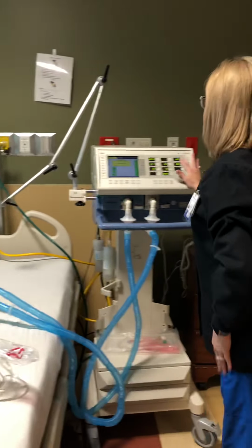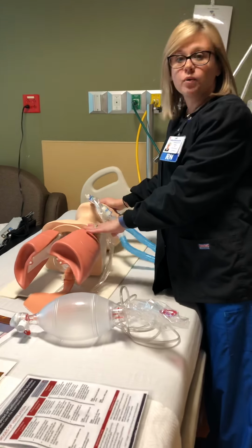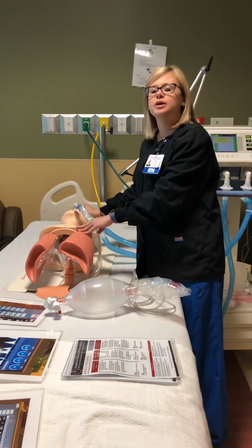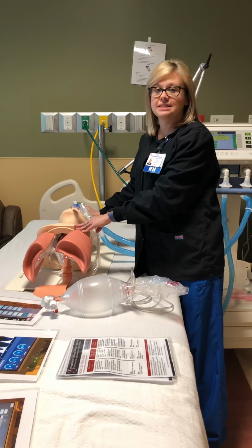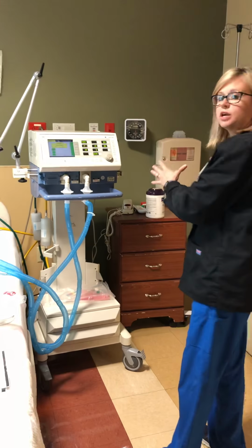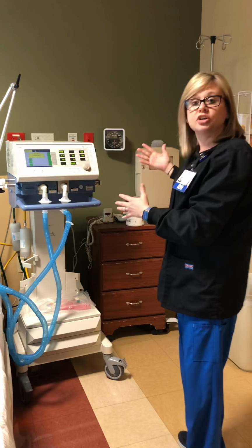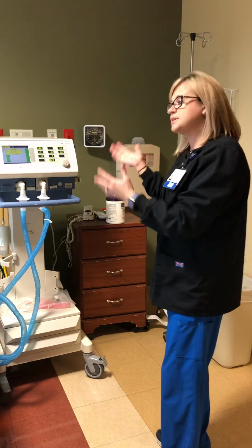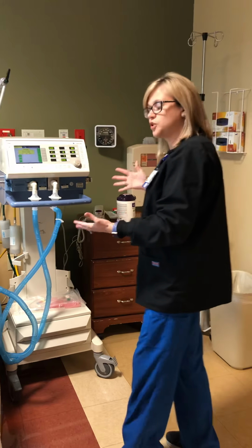So once you hit the silence button, look at your patient, okay? Are they wide awake, biting the ET tube, shaking their head, moving around? If they are, then it means they're probably not adequately sedated. So look at your Alaris pumps, see what's going on. Could the sedation need to be increased, or maybe the nurse came in a few minutes prior and didn't hit restart on the pump, and so the patient hasn't gotten any sedation. So that's one way you can troubleshoot if they're wide awake.